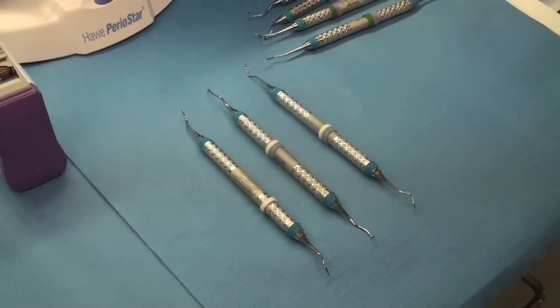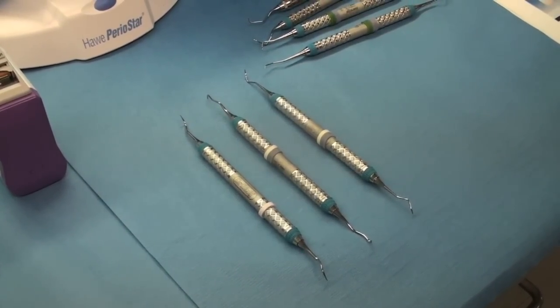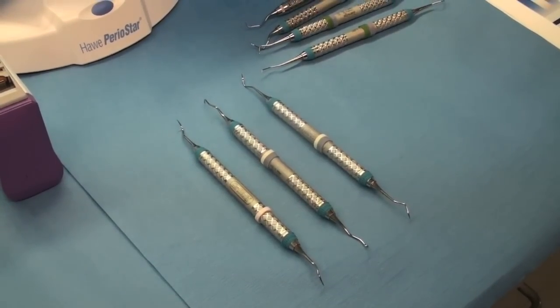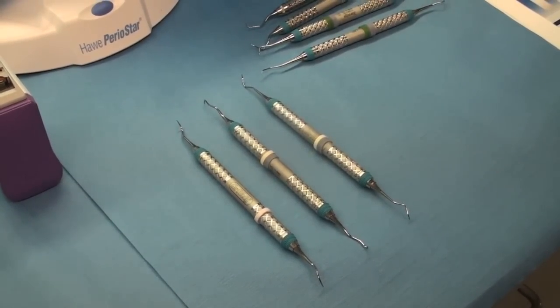So there's three different ways to sharpen and whichever one you use is great. Just make sure they're sharp. You have to get the tartar off with a sharp instrument. All right, good luck sharpeners!